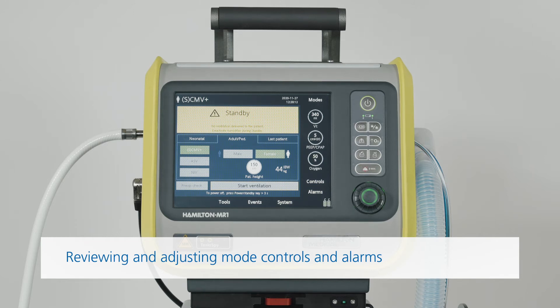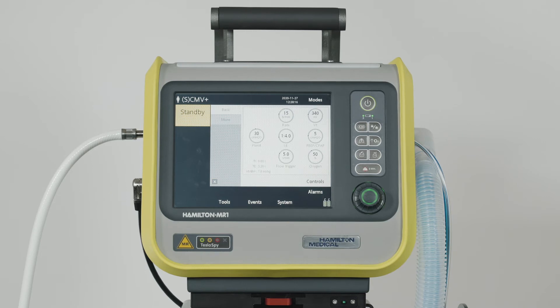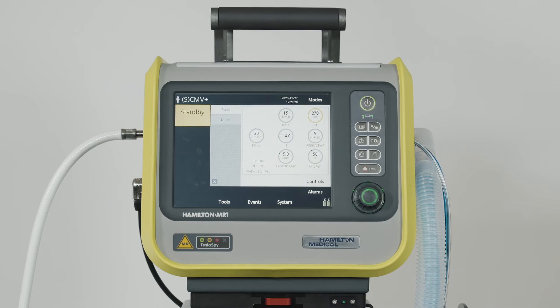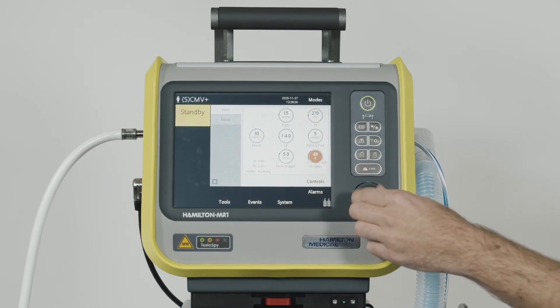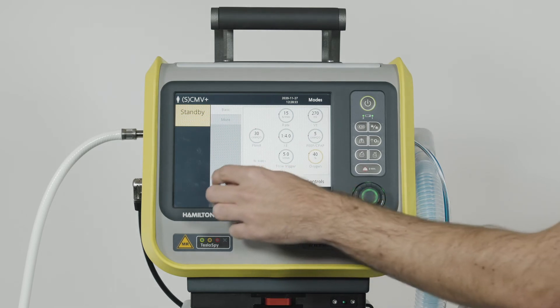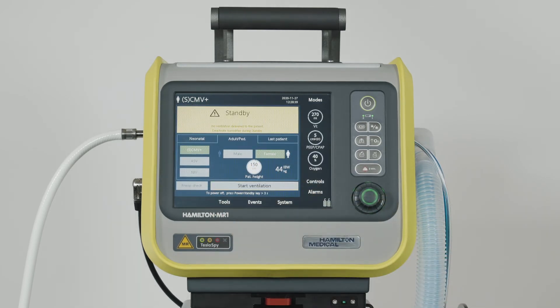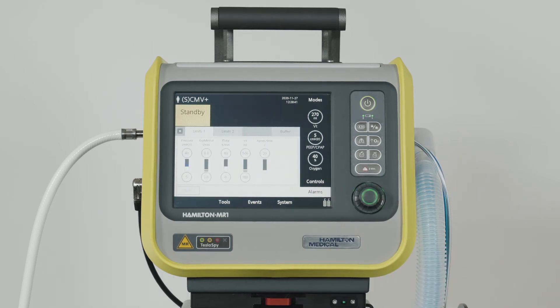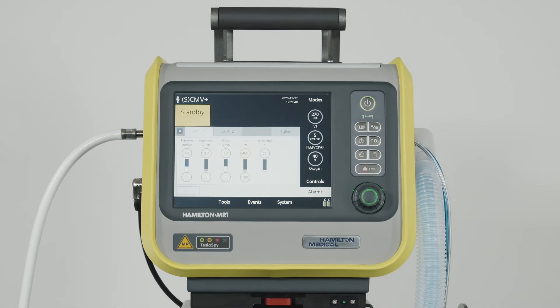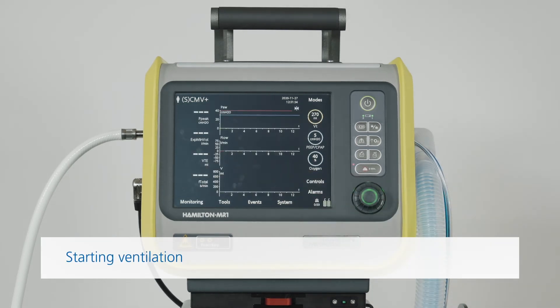Check the control settings and adjust them as needed. To review and adjust the alarms, touch the Alarms button. Then select the alarm control and adjust it as needed. To start ventilation, touch Start Ventilation.